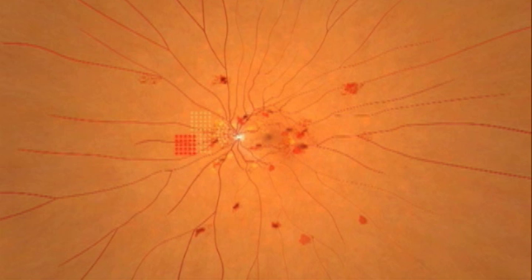Square arrays are tailored for PRP treatment, with smaller square patterns with tighter spacing, and triple arc patterns for the periphery.